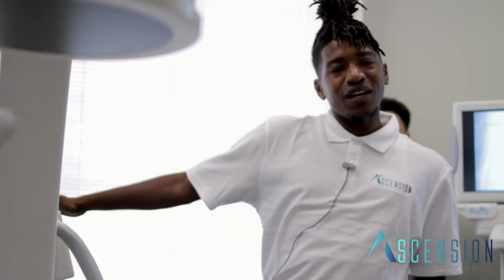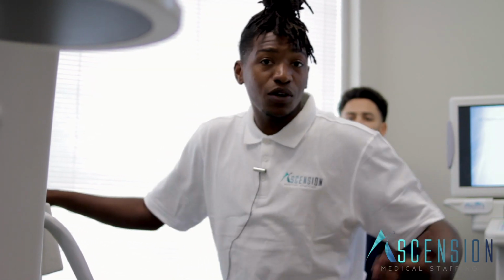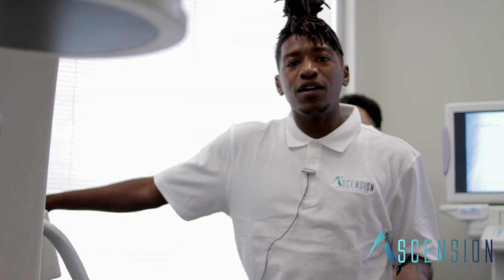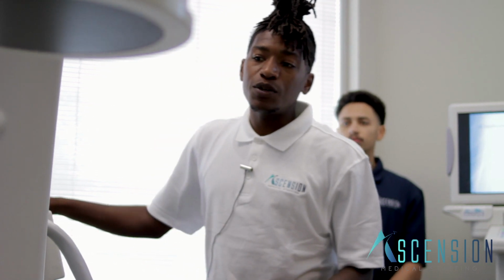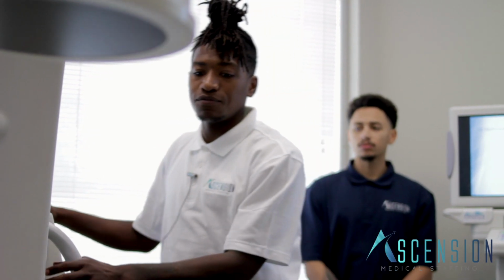Key things with lumbar spine is end plates. It's with everything, but with an end plate, you want that lined up to have the image as optimal as possible for the physician to get the job done. There's certain things in the anatomy that you'd want to know: Scotty dogs, as we know, lumbar spine, facet joints. There's so much anatomy that you need to brush up on and make sure you know when you step into a pain management room.